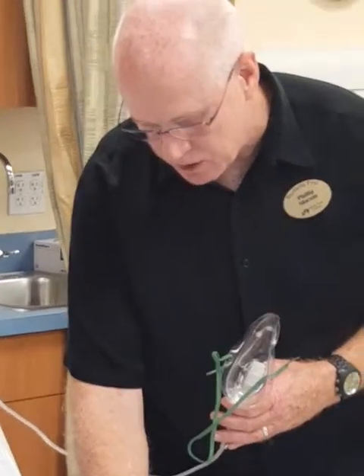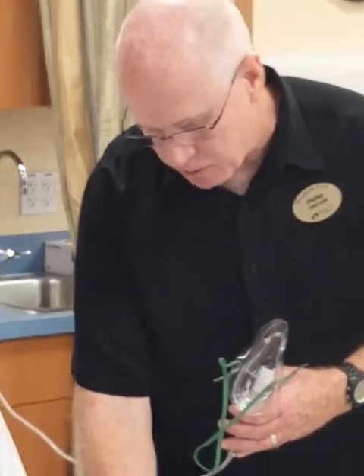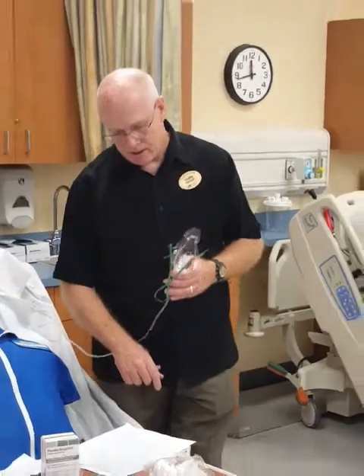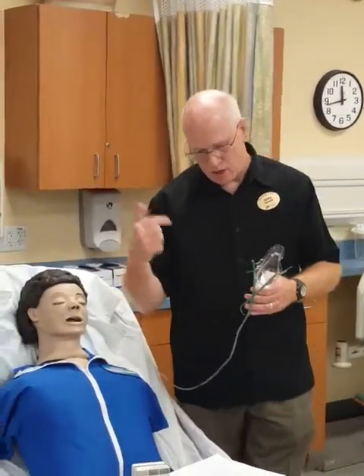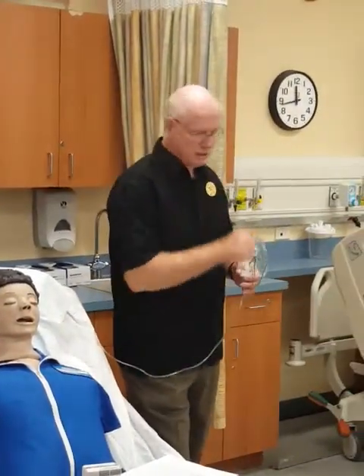These reservoir tubing. Small volume nebulizer with mask. Connect the tubing to the gas source — air or oxygen — whichever is appropriate.